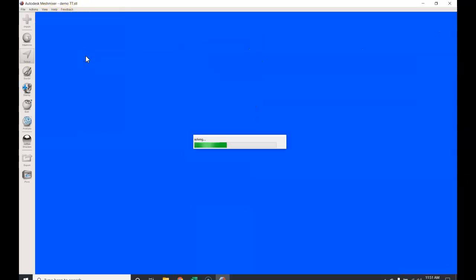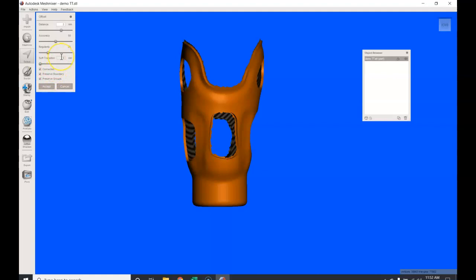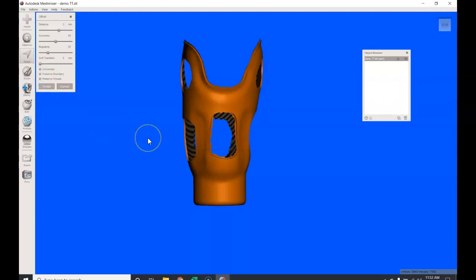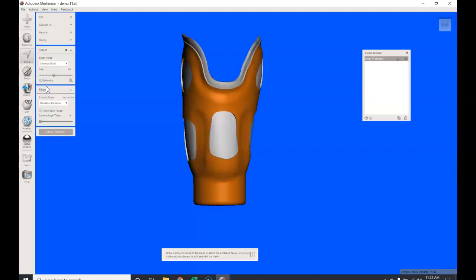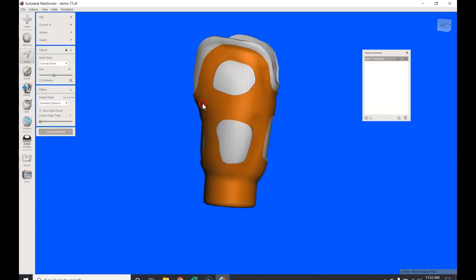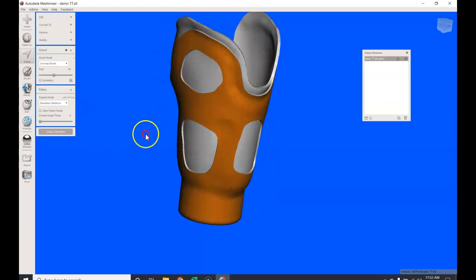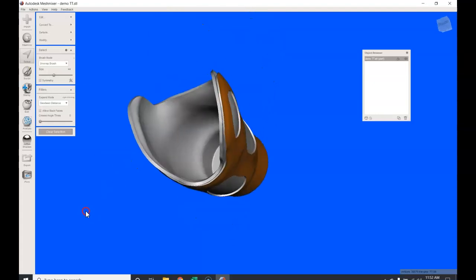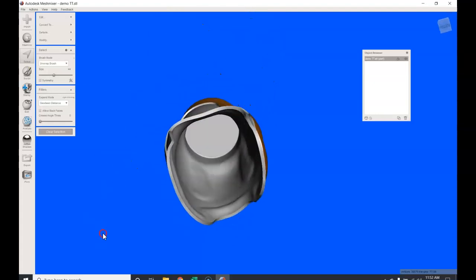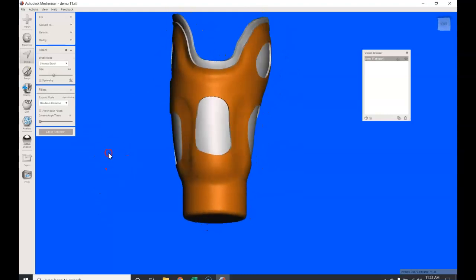So what I'm going to do, and again, based on the nozzle I print with, which is 1.58 to 1.6 millimeters, I am going to do another offset. What I found is doing an offset of 2 millimeters—I'm going to leave this accuracy alone, I'm going to leave the regularity alone. I'm not going to do a soft transition, although you can. The soft transition is what's going to provide a transition from the frame to the base, and I'll try to explain that. We're going to be connected, preserve boundary, preserve groups. Accept. If you have a slower computer, it may take a little bit of time for Meshmixer to get through this. There we go. So we had our now attached 2 millimeter extruded frame on top of our original 3.6 base thickness. And if you notice, the inner walls have not changed. So I'm going to go ahead right now and clear the selection.